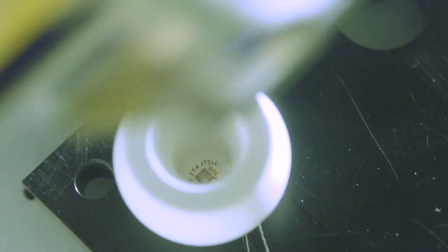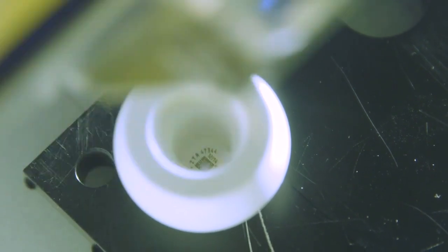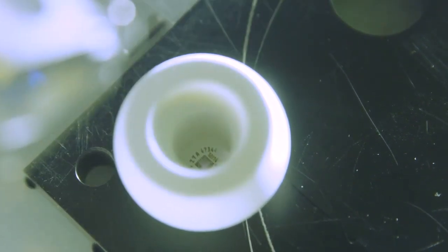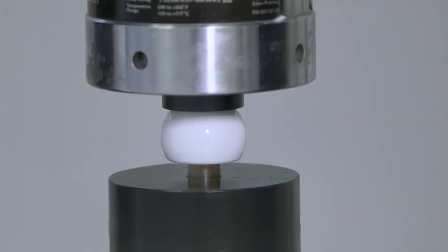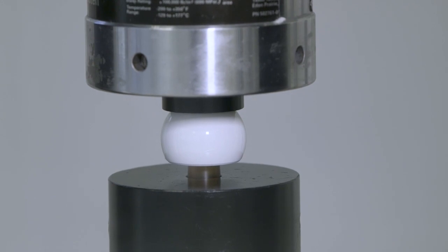Each component is laser etched with a serial number, size, and lot number, as well as any other information requested by our customer. Each femoral head is mechanically tested to ensure it can withstand axial loading.